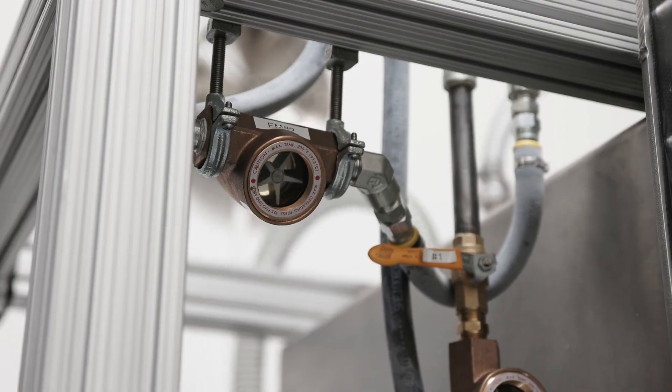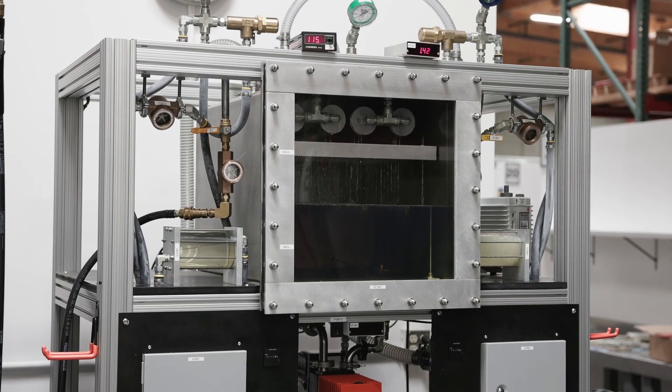When looking at a refurbished or reloaded tube, one of the key things is to go through calibrations on your X-ray units that meet every requirement laid out by the equipment manufacturer, as well as the image quality tests that go along with that.